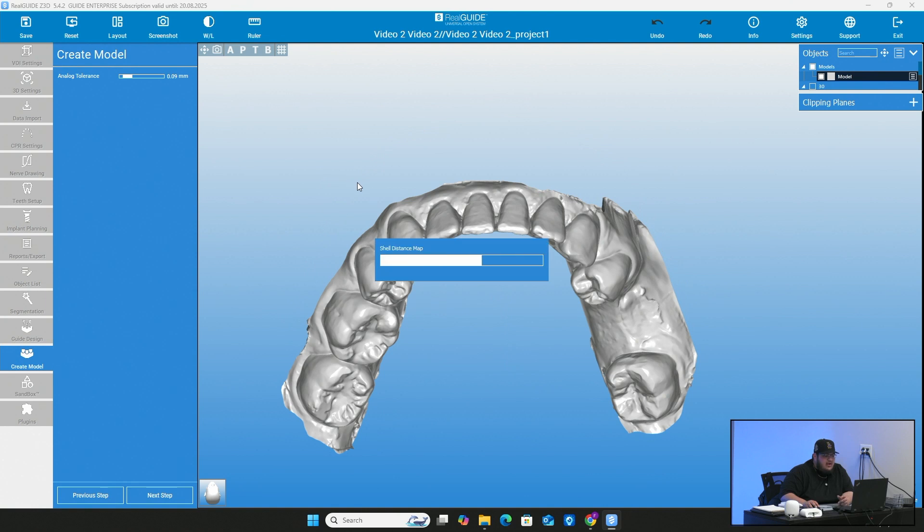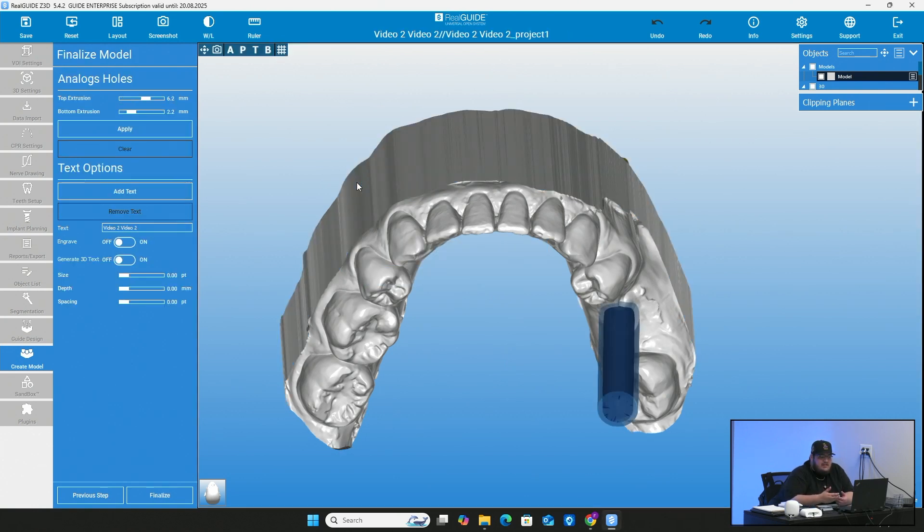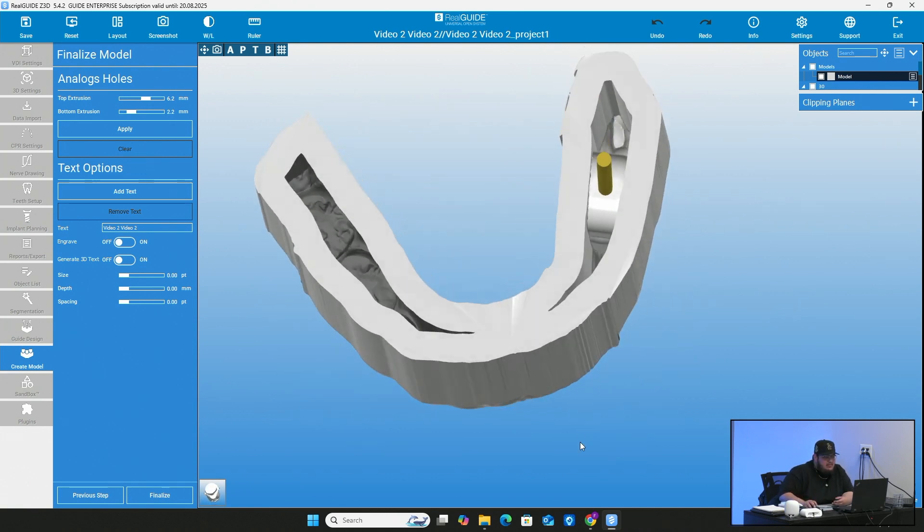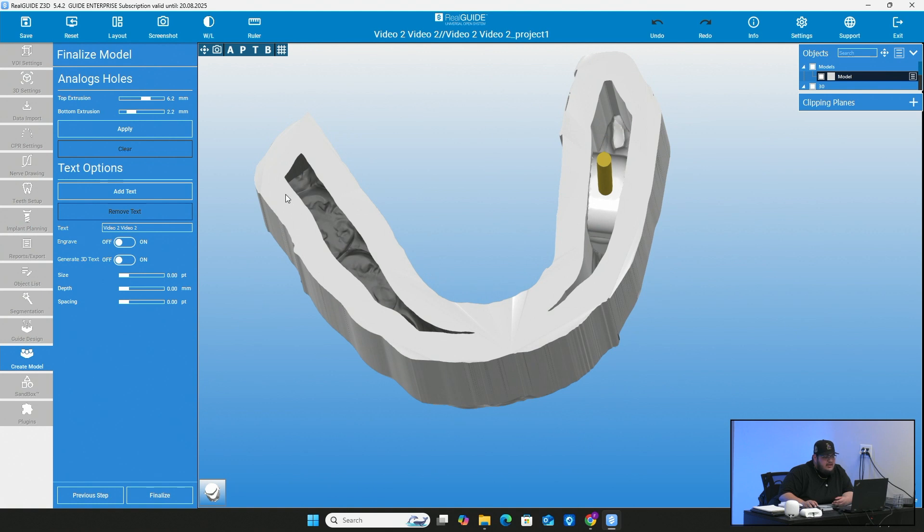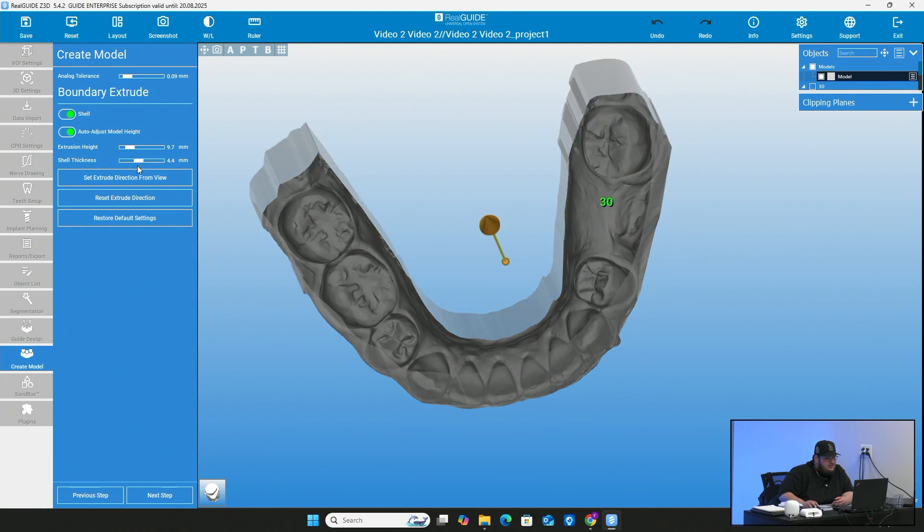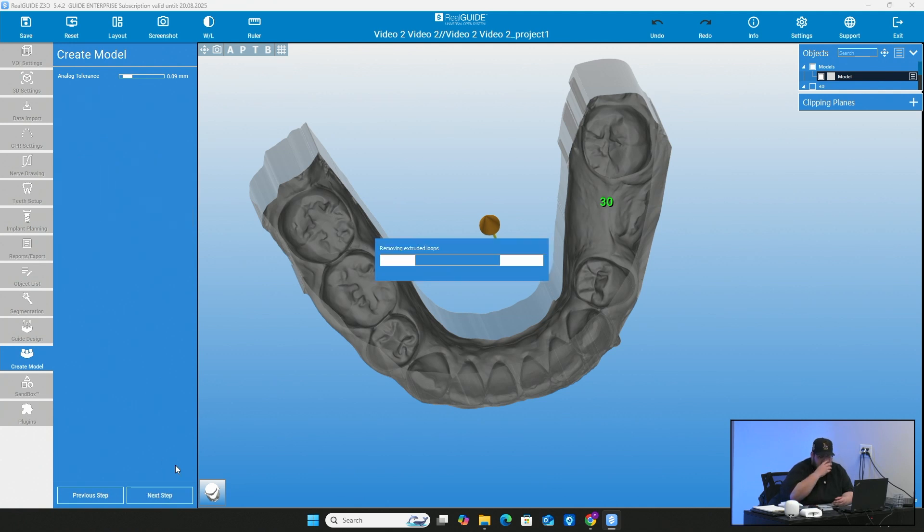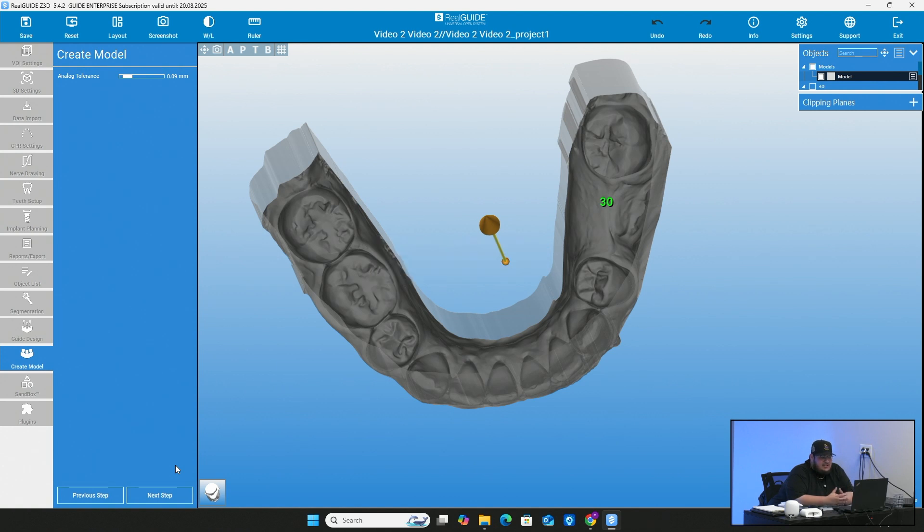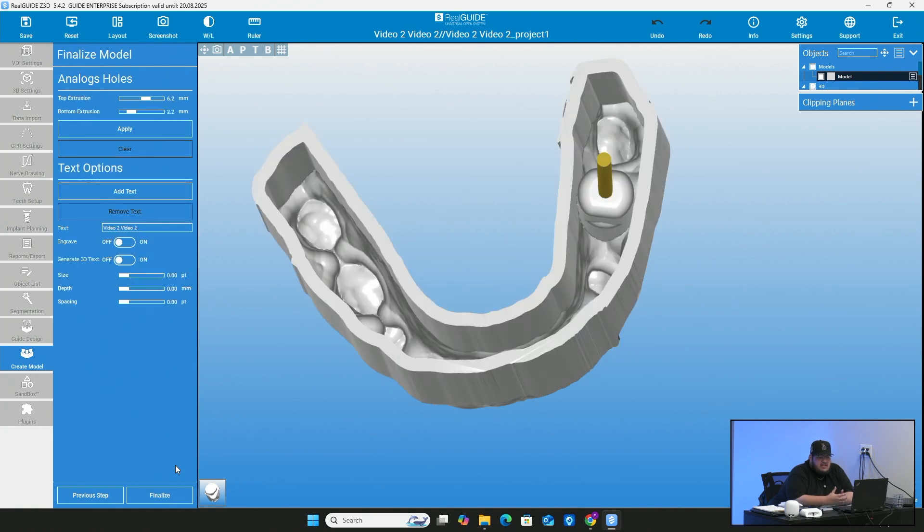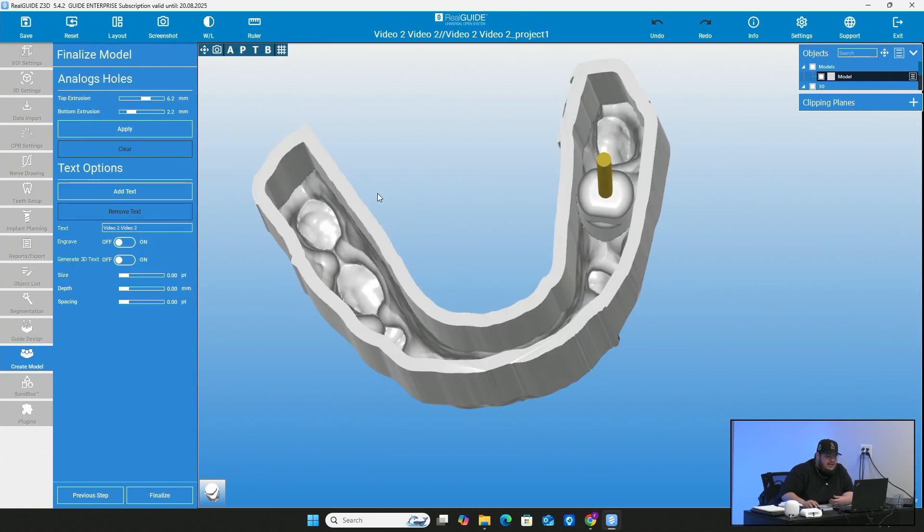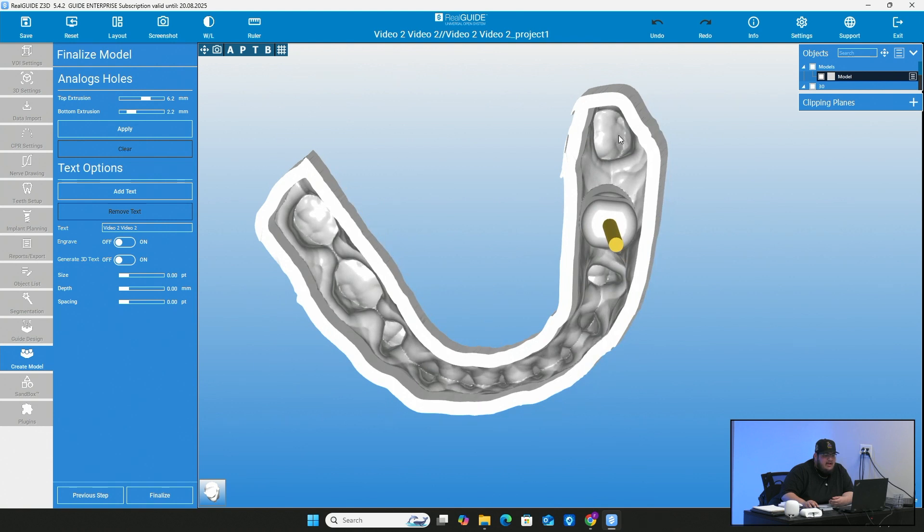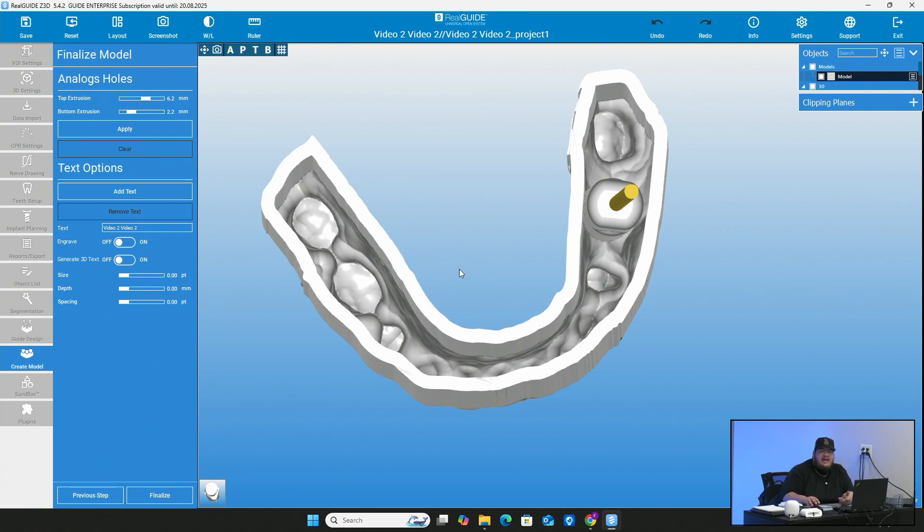And it should create the model. Sometimes this step can take a little bit longer if you leave too much of that data that I showed you guys in the beginning. So that's why sometimes I clean it off. But if I come right here to the bottom, you see how thick these walls are? That is because I set it to four millimeters. So if I go back real fast and just change the shell thickness from four back to where it was, which was two, and I go next step, you'll be able to see the difference. I do believe it should just stay at two. I think this is perfect.